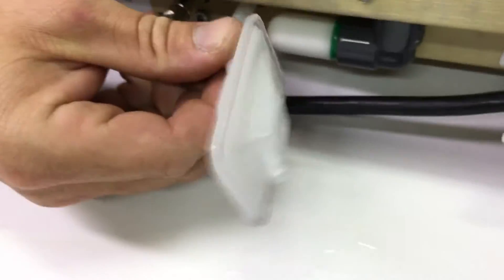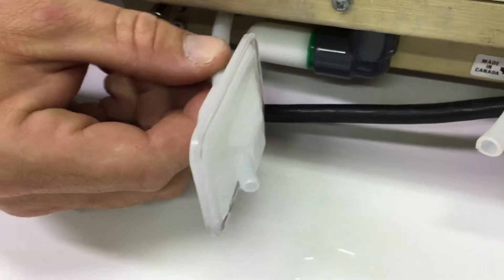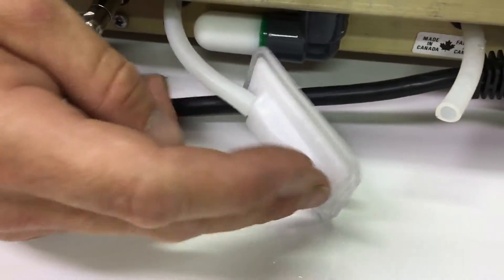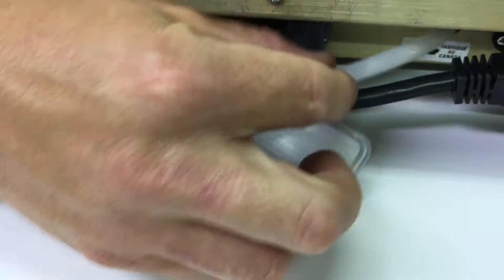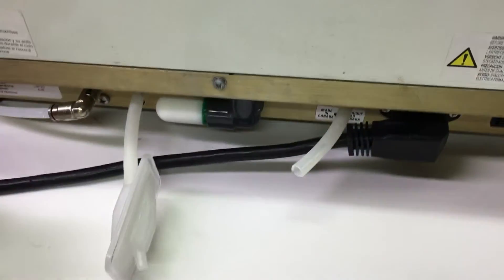Basically, what this means is that the check valve is bad, and it's now leaking air and water back through here, back through this tube, and into the air dryer.